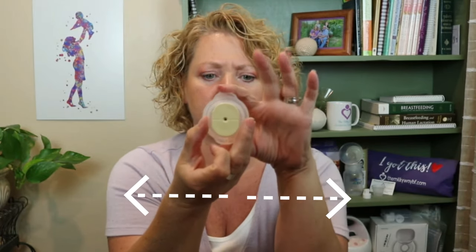I've taken this one apart so you can see how to put it together. It's important that the parts fit tight so that you have suction. Inside the pump handle goes a flexible membrane — there's a little nub at the top and bottom so you know which direction it goes. There's a stem that goes inside it and needs to be pushed firmly all the way in. When that stem piece is in, it should be horizontal — there's a line — and it should be running horizontally. Then it fits into the handle with the nub fitting right in place. Be sure to push it all the way in firmly so that you have suction.